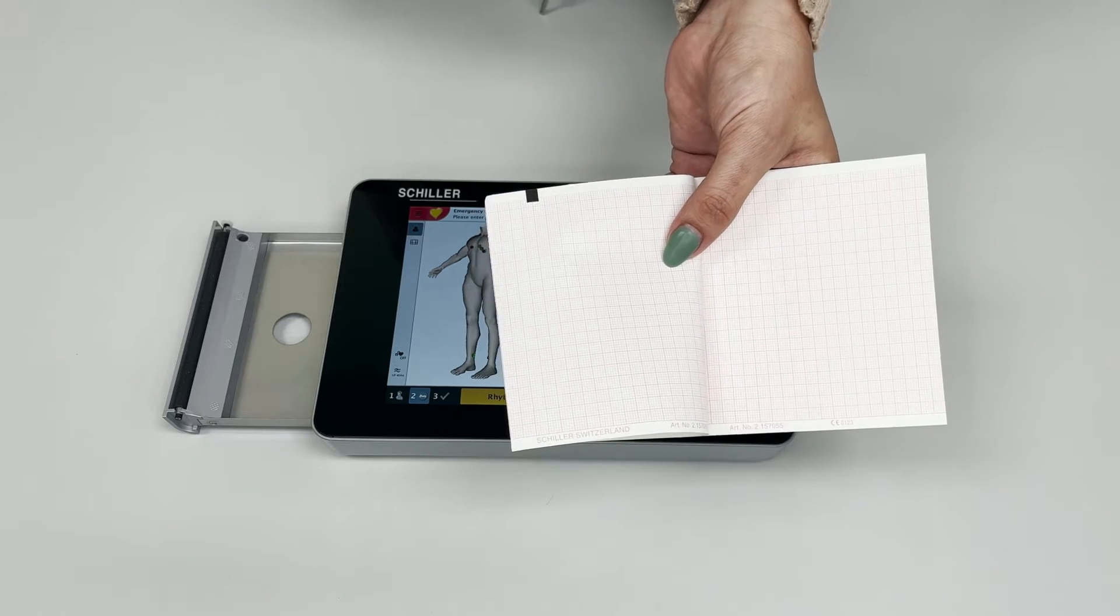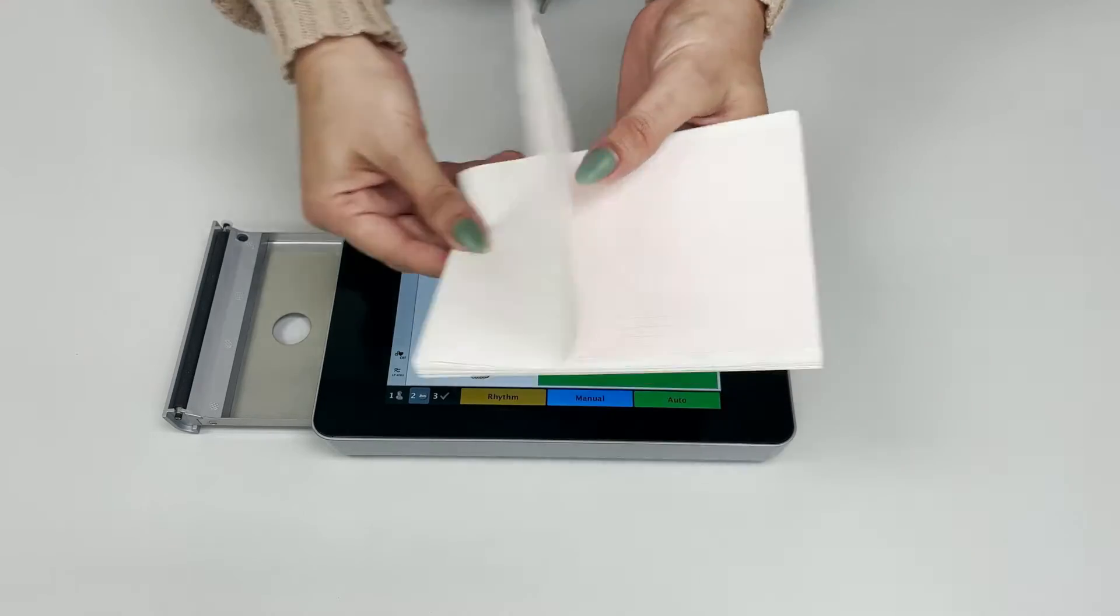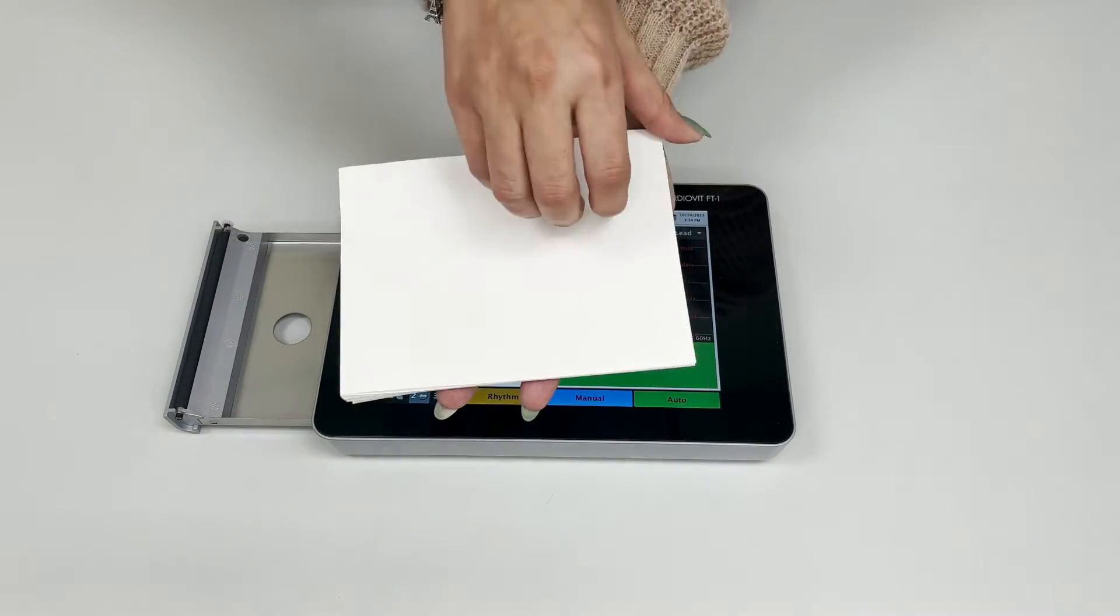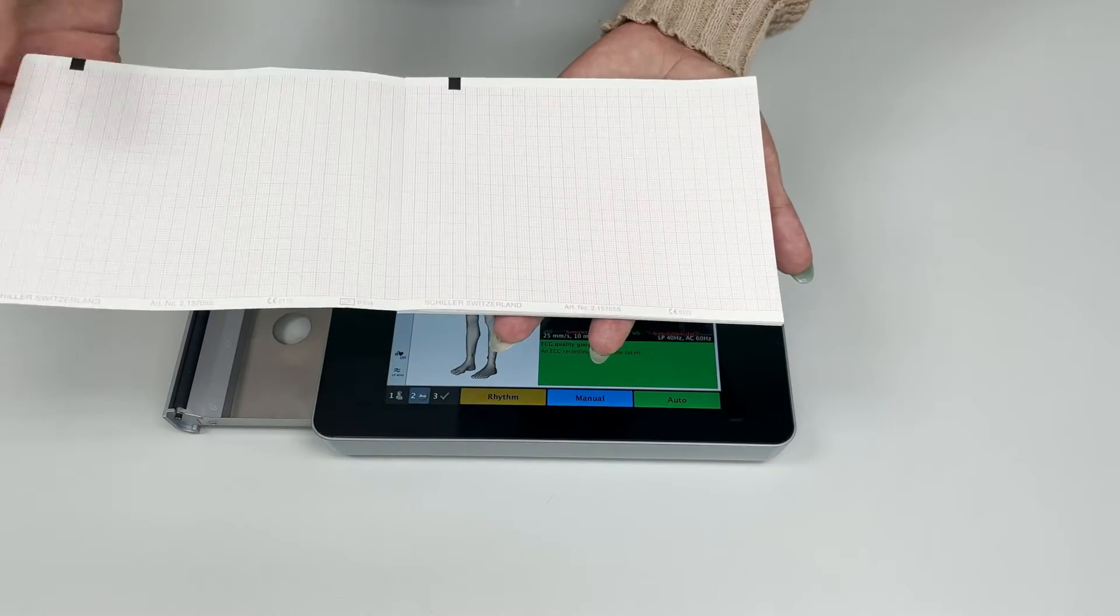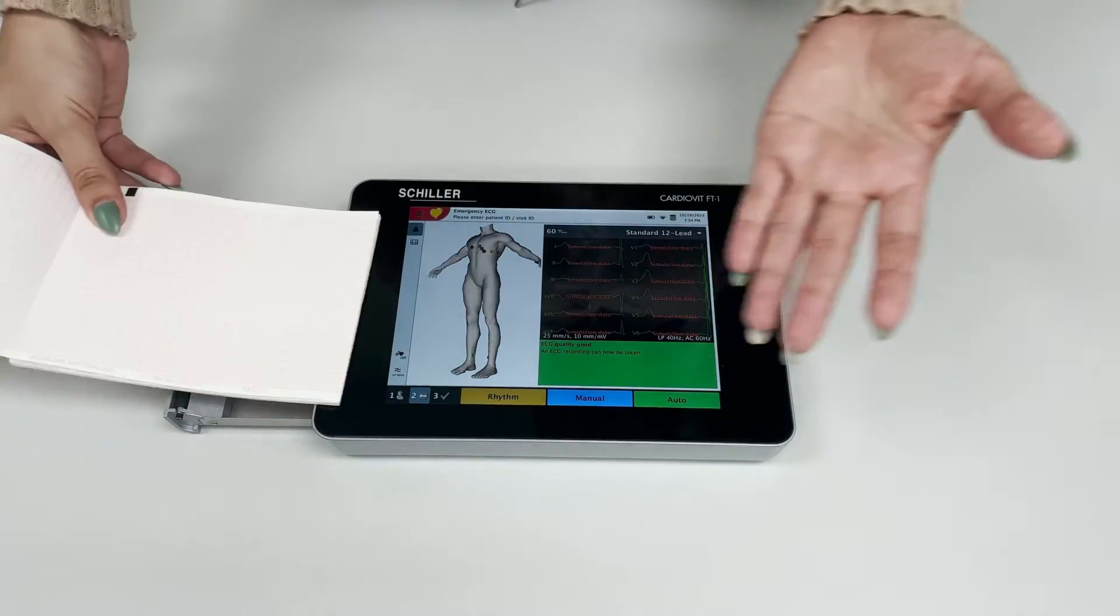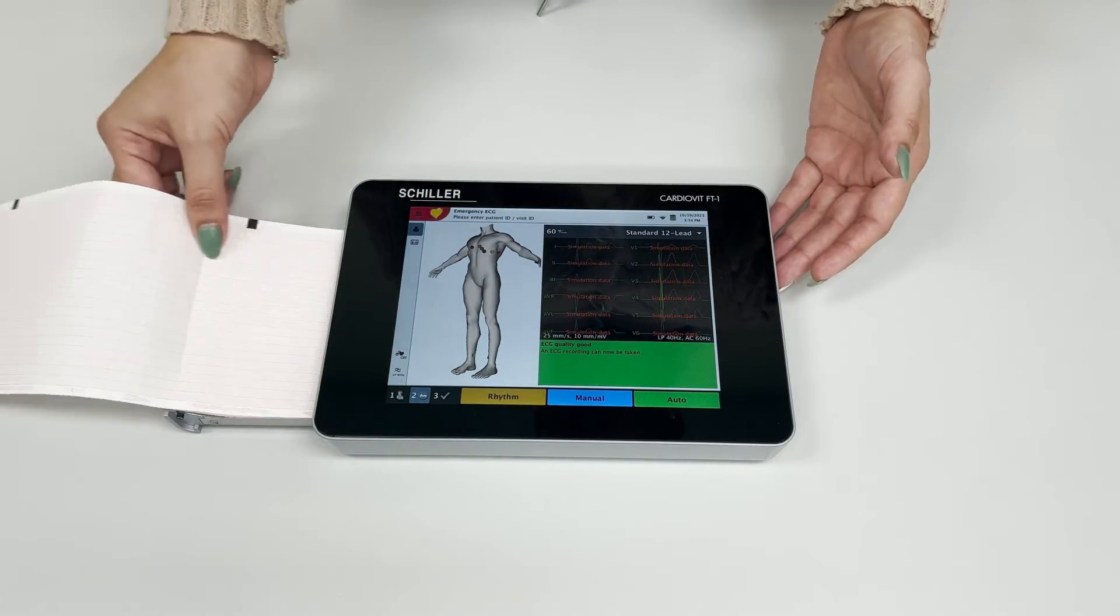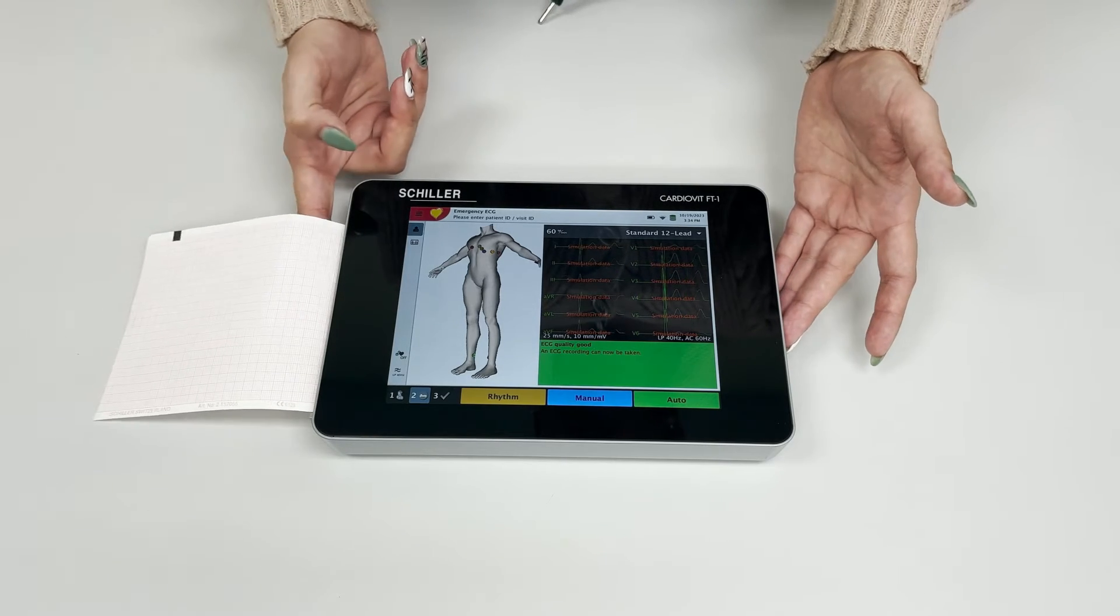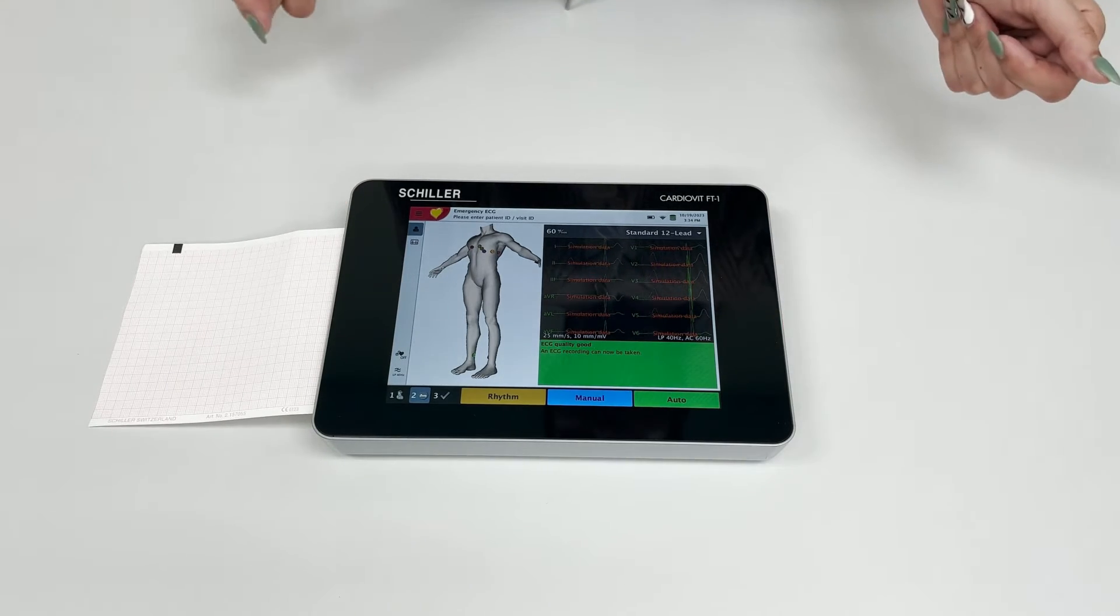Let's go ahead and insert it. You can extend that first sheet of paper, drop your stack of paper inside the paper drawer, and gently close the drawer.